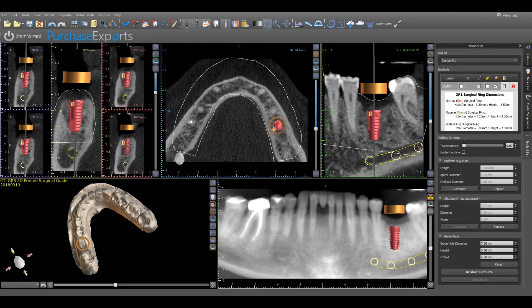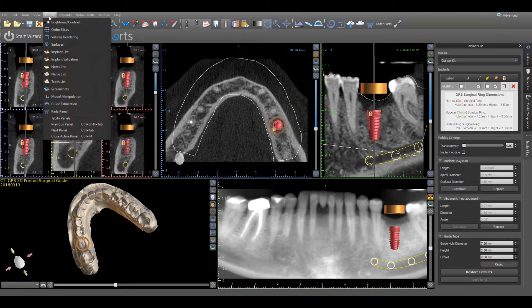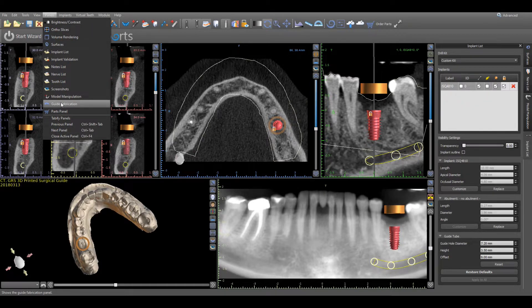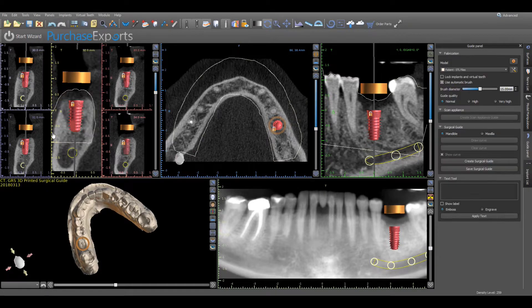And finally, move to the left and under the Panels menu, click on the Guide Fabrication subheading, which will automatically open and create a tab in the Open Panels menu to begin the Guide Fabrication process.